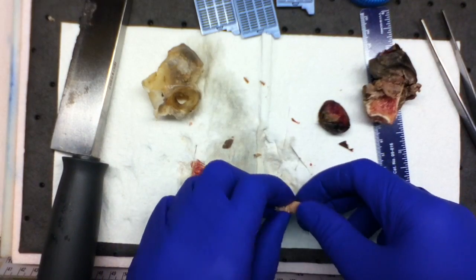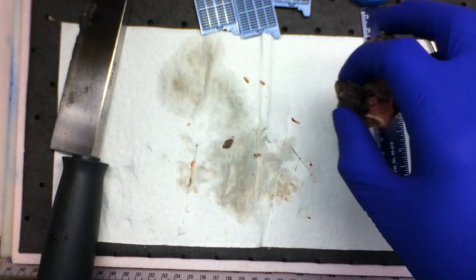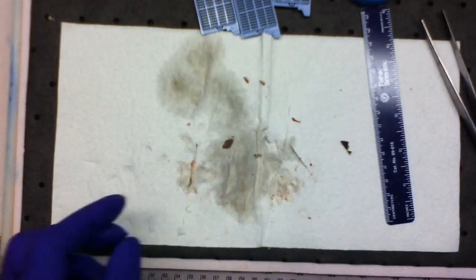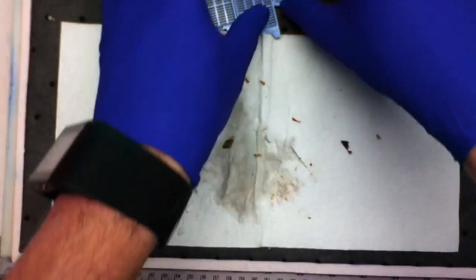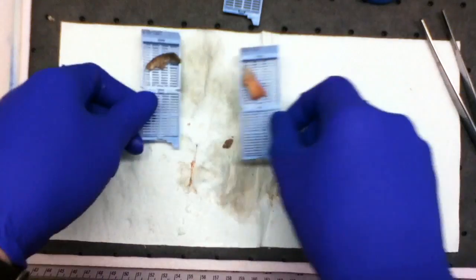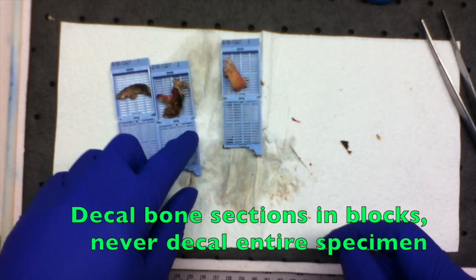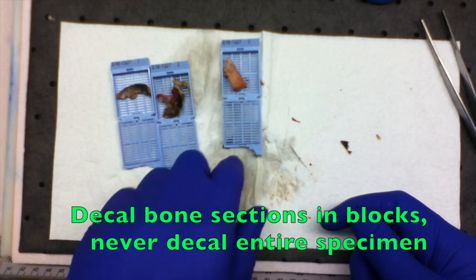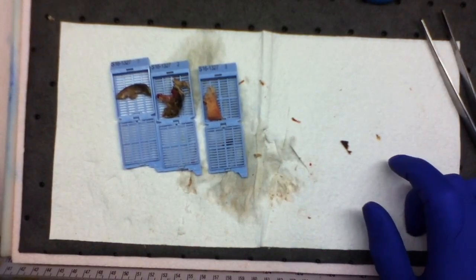It's a little big. I'll make that thinner after I decal it a little while. Okay. So here's my sections. Pretty simple. Skin and soft tissue margin, gangrenous skin with underlying soft tissue and bone following decalcification, and then bone at resection margin following decalcification.